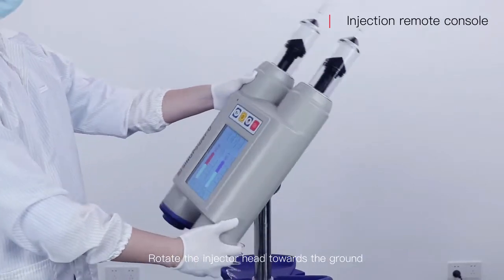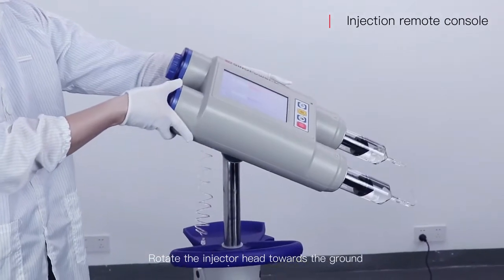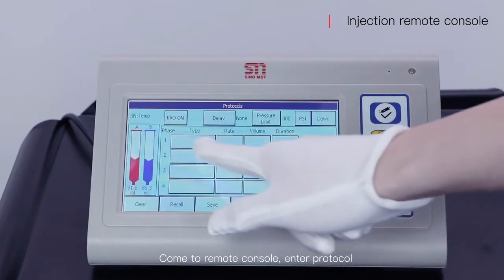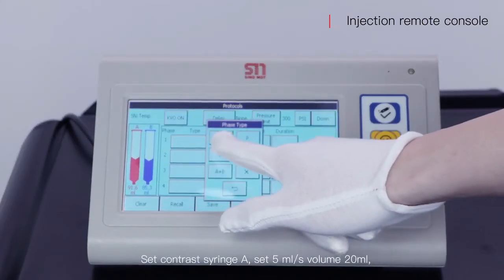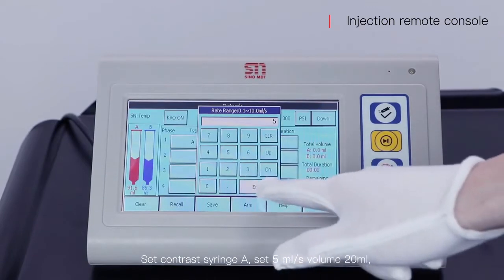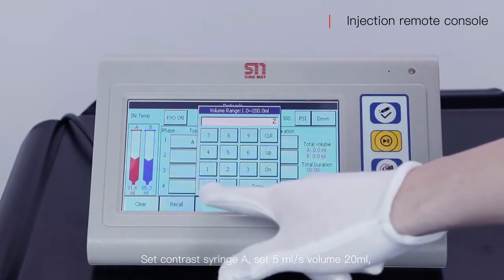Rotate the injector head towards the ground, come to remote console, enter protocol, set contrast syringe A, set 5 ml per second and volume 20 ml.